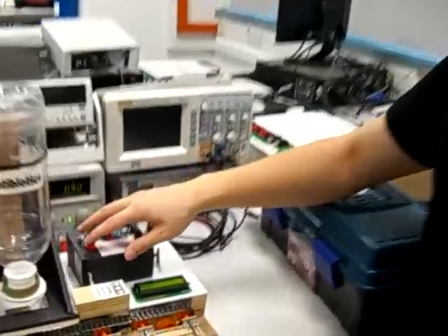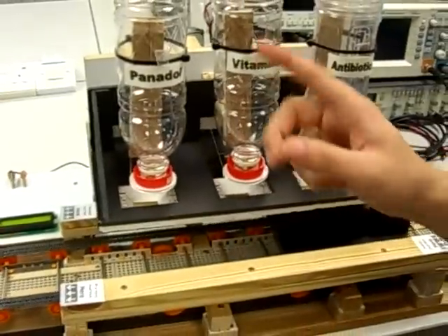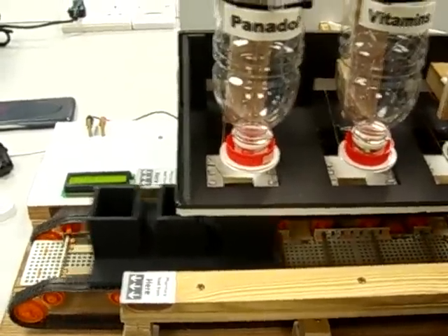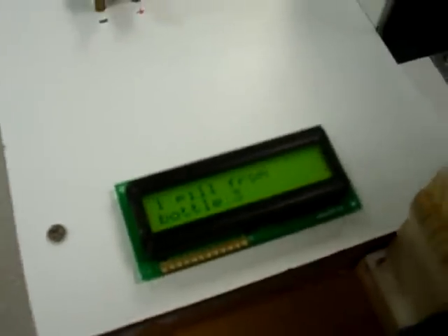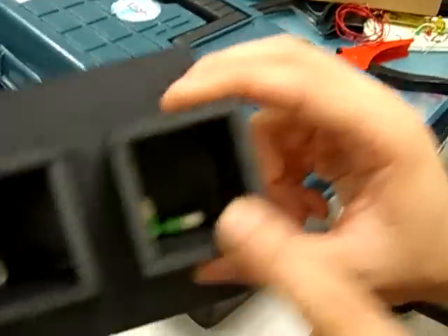For the next patient account, we press and hold to dispense. This patient requires two Panadol and one antibiotic, so it will skip the middle compartment. The motor turns the bottle cap, and the LCD shows the number of pills dispensing from which bottle. That gives us two Panadol and one antibiotic. That's all.